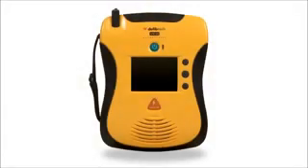While we've won awards for design and innovation, we've never lost sight of our true mission, saving lives. With the DefibTech view, we've taken the AED and made it even better, by making it easier to use and easier to maintain. There is nothing more important and rewarding than saving a life. The DefibTech view gives you a better chance at doing that, successfully and with confidence.